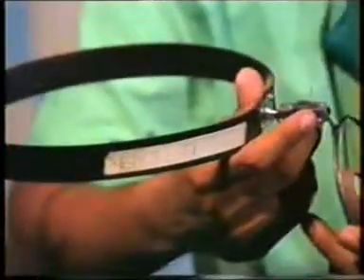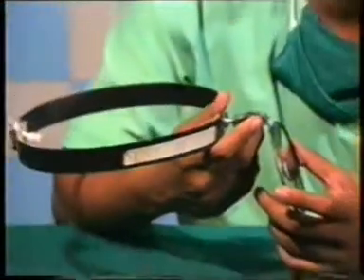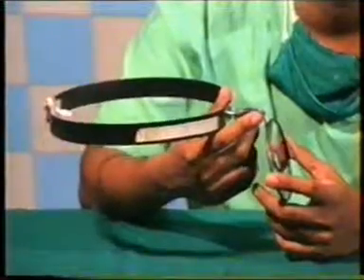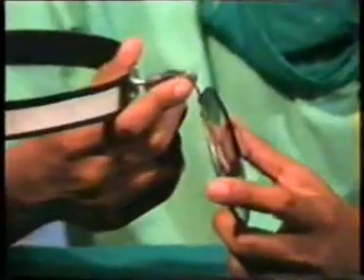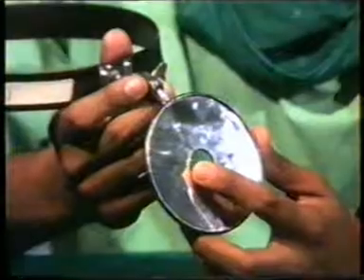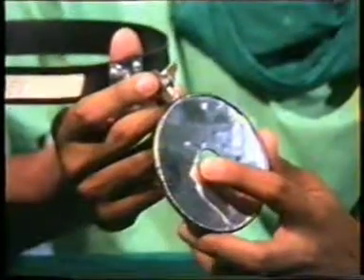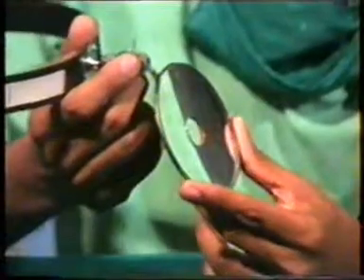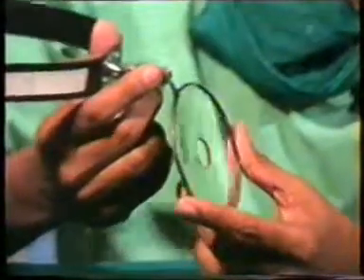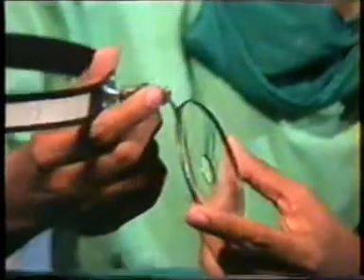The advantage of using this instrument is that both the hands of the examiner are free for procedures like antral puncture, syringing the ear, doing an indirect laryngoscopy or a posterior rhinoscopy. Binocular vision is preserved by having an aperture in the center of this mirror so that the parallel gaze of the examiner is maintained. And thirdly, the concave mirror concentrates the light onto the patient, and therefore visualization is better because of the illumination. However, recent advances have taken place in ENT. The mirror still persists for use because of the following advantages that we have listed.